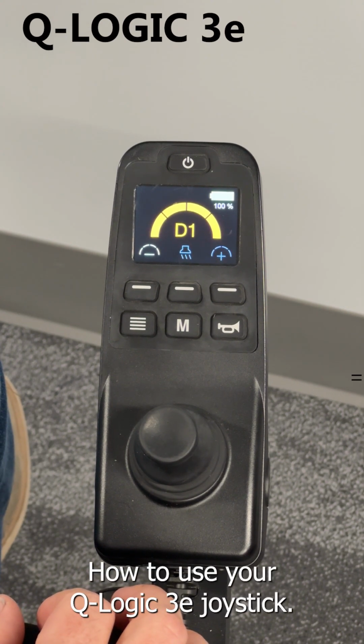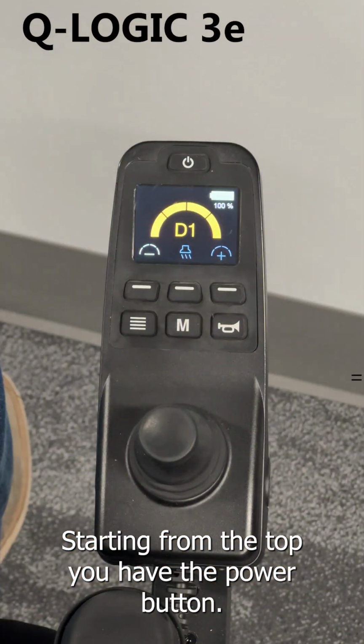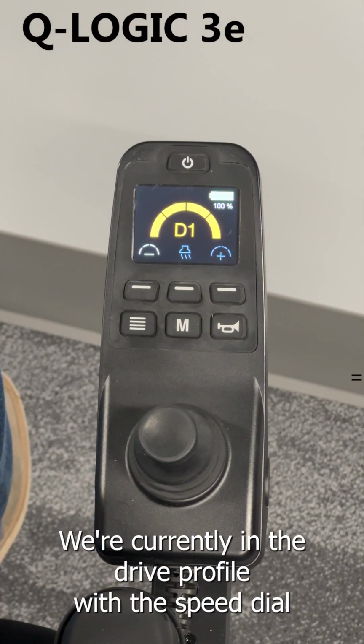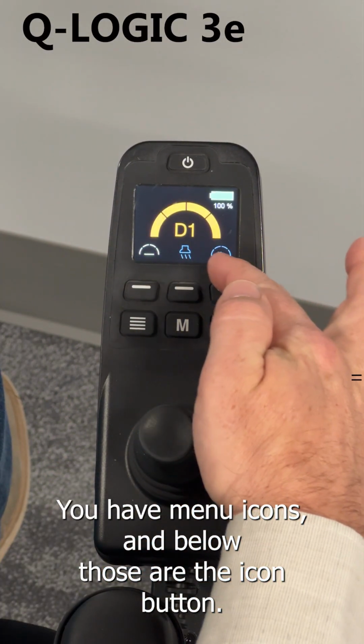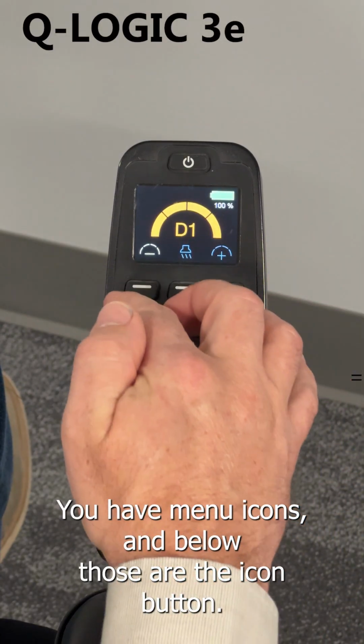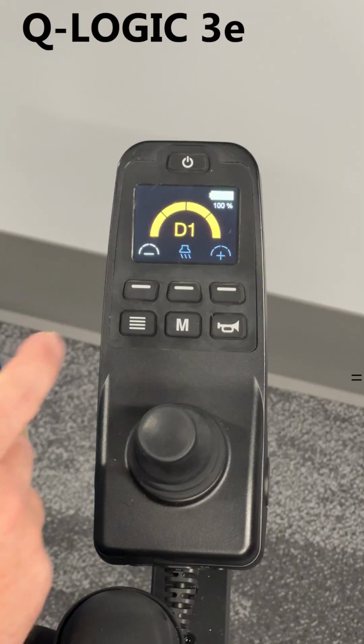How to use your QLogic 3E joystick. Starting from the top, you have the power button. We're currently in the drive profile with the speed dial. Below the speed dial, you have menu icons, and below those are the icon button access.